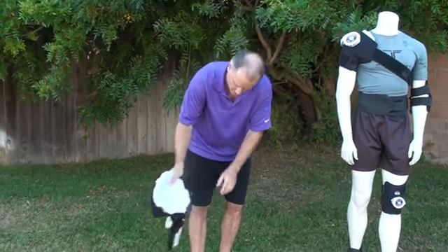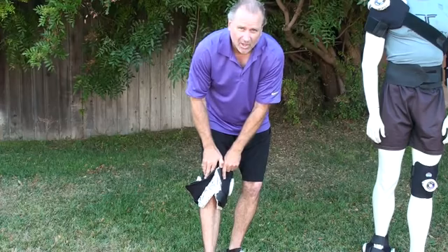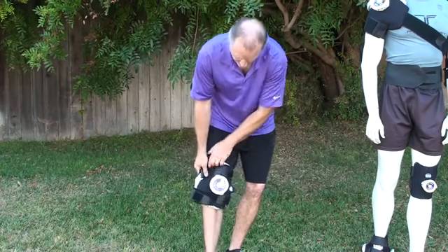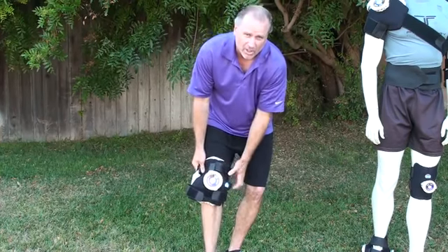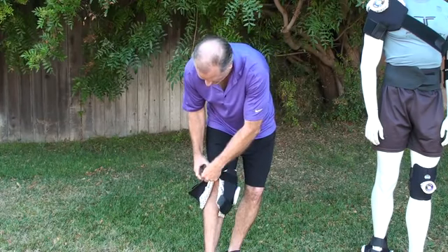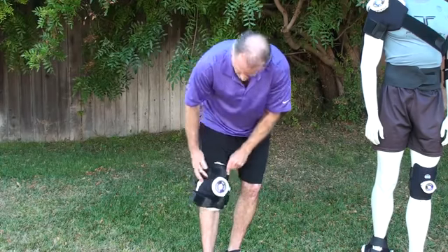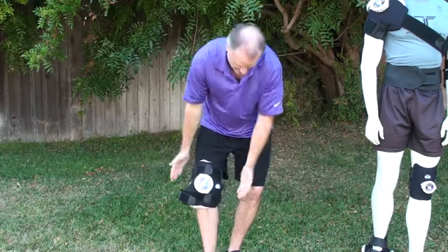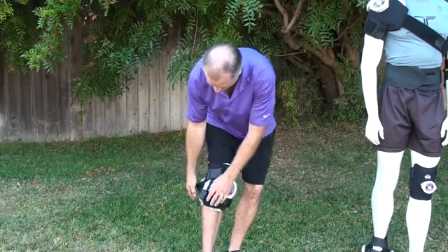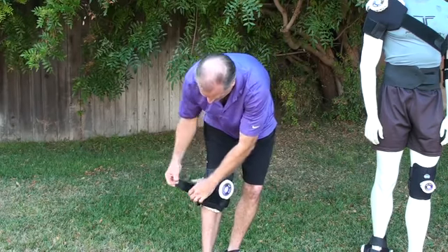Once you do that, you just go ahead. You can put this on going side to side or you can put it on front and back. As you can see you get full coverage around the entire knee. And then very simply just strap it on with these Velcro straps. You get two areas of adjustment — one here and two here, and two on this side as well. And remember, you're not doing it with a full bag of ice — it's a half bag of ice.